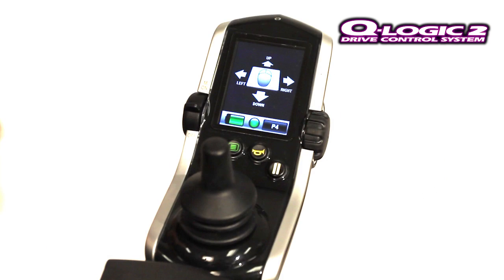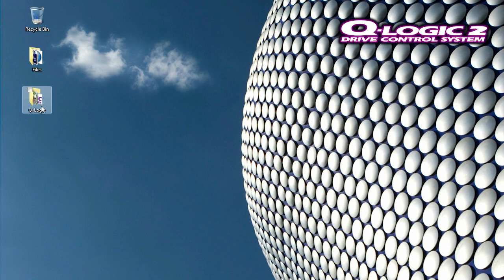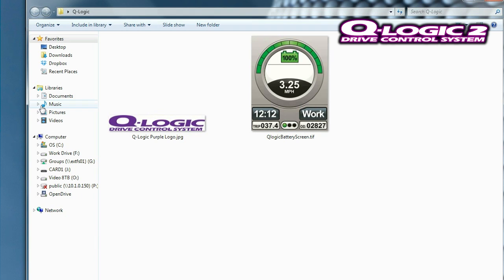With this new firmware update, your clients now have the ability to operate a computer mouse emulation on a PC or Mac. With the mouse emulation, you have the ability with the hand control to move your mouse pointer. Also through programming, you can give your clients the ability to make left and right clicks.